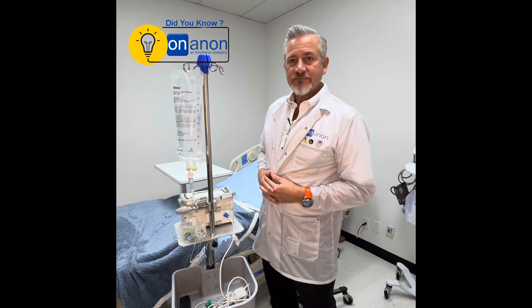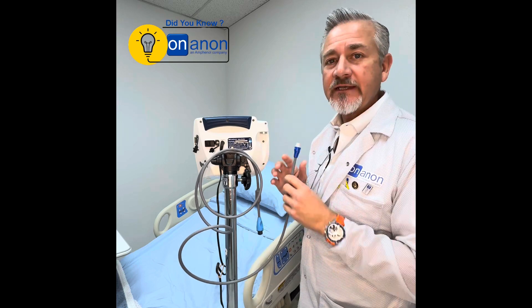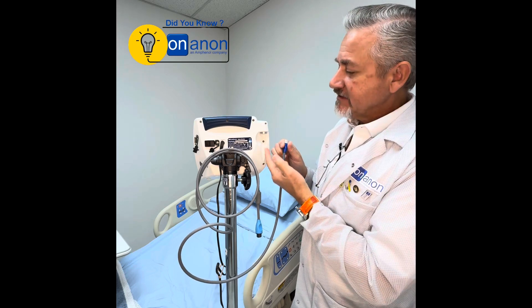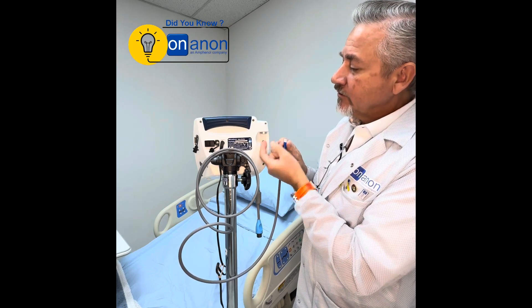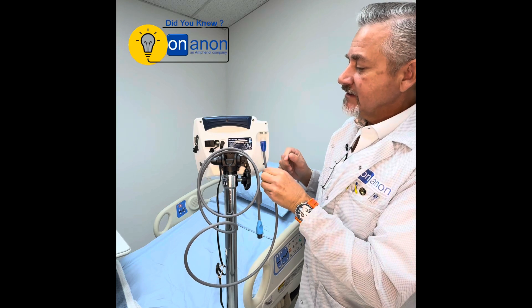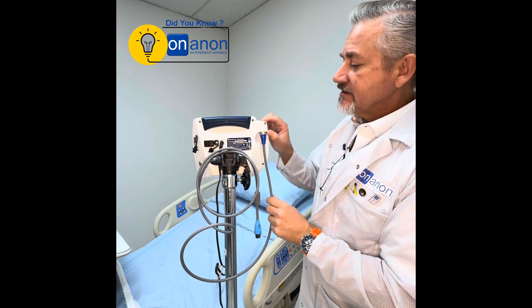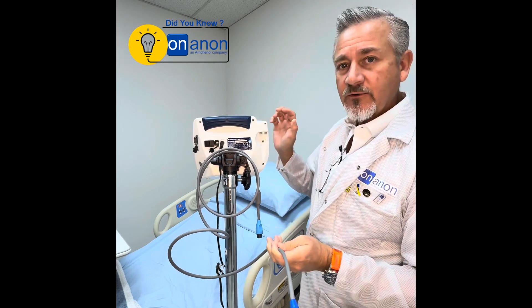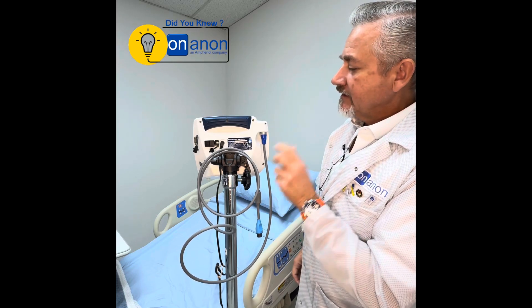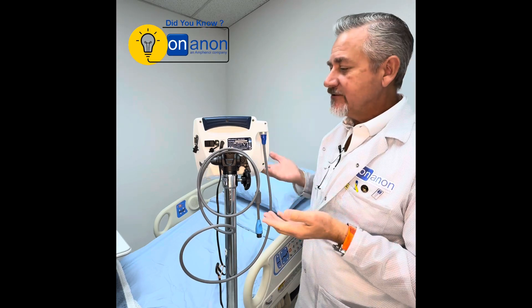MagConnect — the most intuitive connector in the world. Often with life-saving medical devices, doctors and nurses are having to interact with connectors and the device itself, and often there are very cramped spaces for a physician to plug or unplug a connector due to physical constraints. MagConnect is a perfect solution for this. The nurse or doctor just has to get the connector somewhat close and it plugs itself in. And if somebody were to trip or accidentally pull on it, it quickly comes unplugged without damaging any of the device, and then simply get it close and it plugs in. MagConnect — the most intuitive connector in the world, ideal for medical device applications.